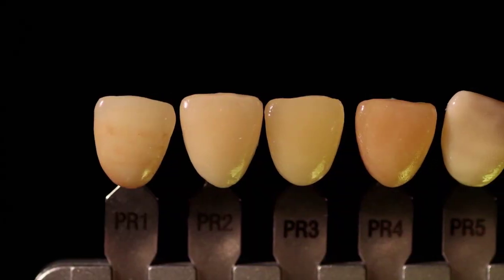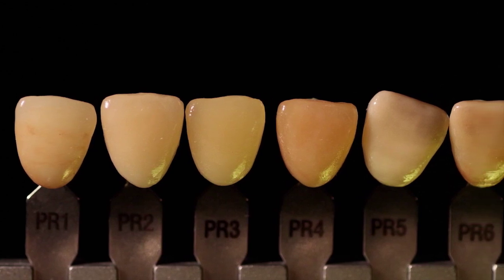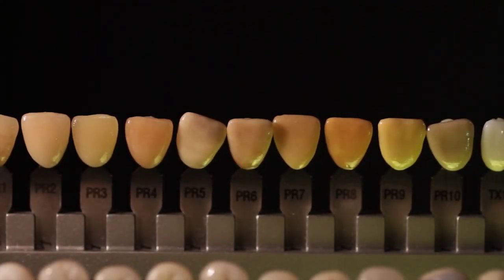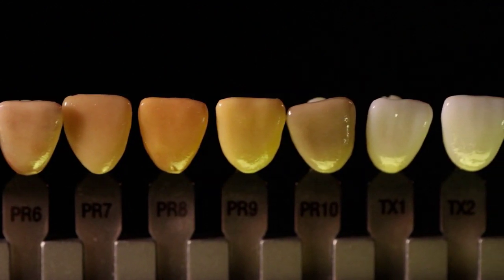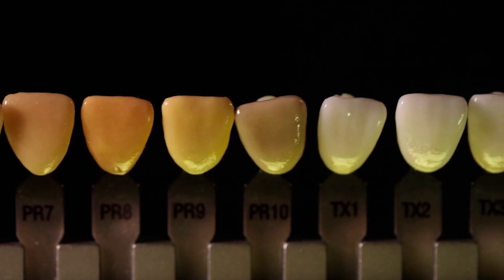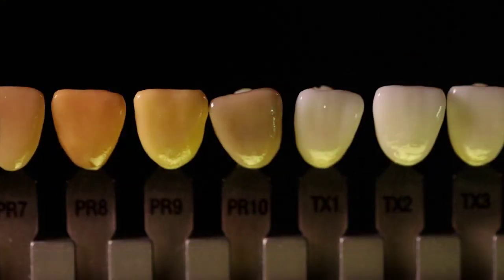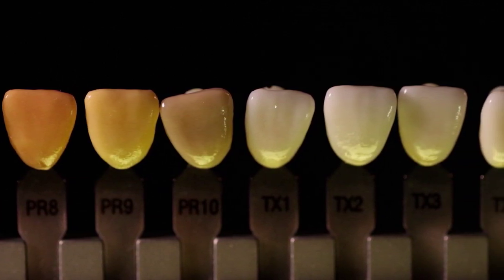7.0. After preparation, the stump color of the tooth is commonly anywhere from very light to black. Taken into consideration is the gingival area, the appearance of a post-core, and dark stump color due to internal and external staining. Each shade tab has pink porcelain added to the gum area to mimic pink tissue. It is especially important for cosmetic cases that we take into consideration whether or not the stump color is brown, ochre, black, or gray, and how much graduation of color we need to cover.